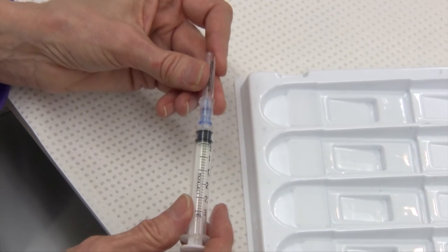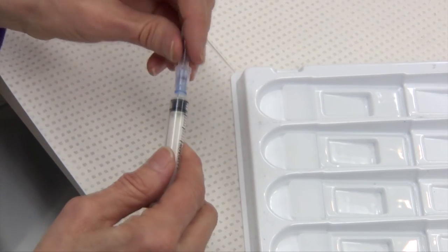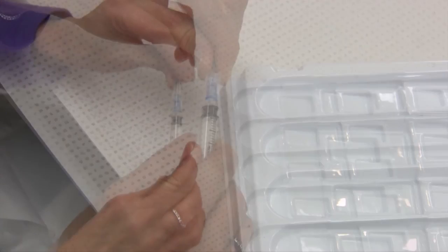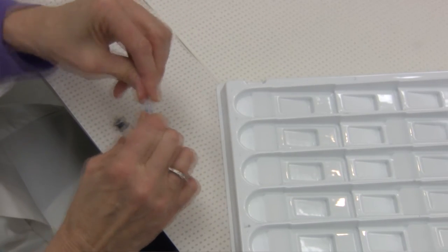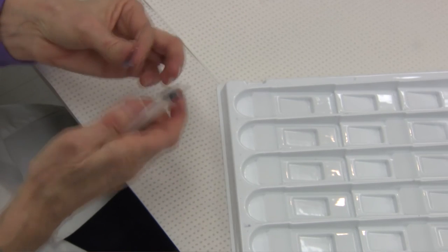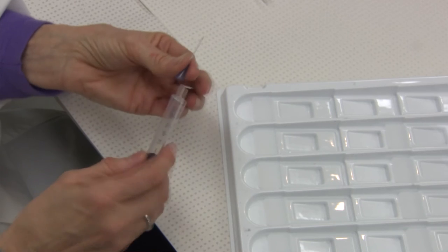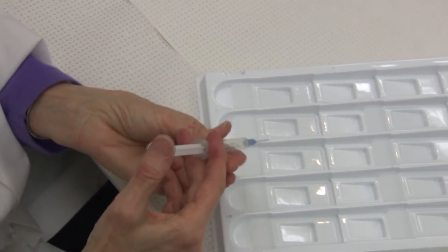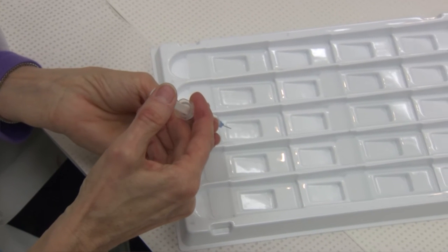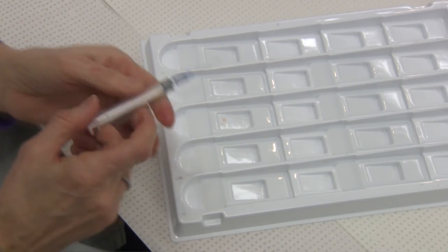The steps to make your slide-over-slide smears are: first, detach the needle from the syringe, fill that syringe with air, and reattach the needle to the syringe. Then take the cap off of that needle, make sure they're tightly joined, and express material onto two or three slides.